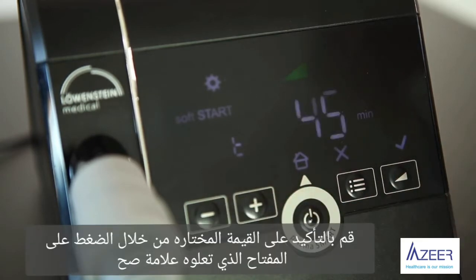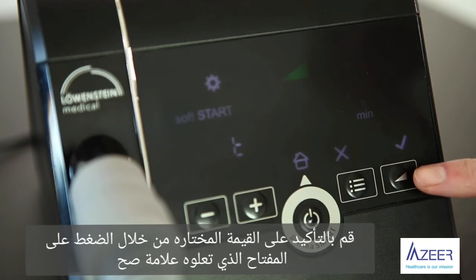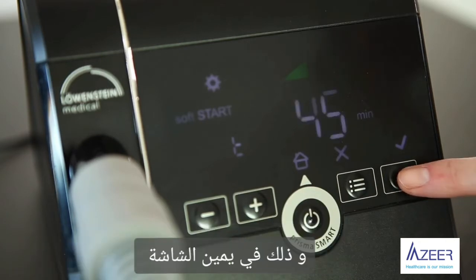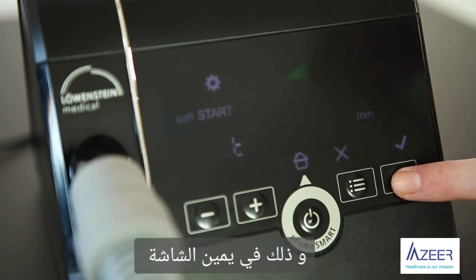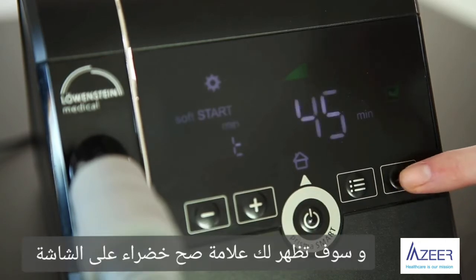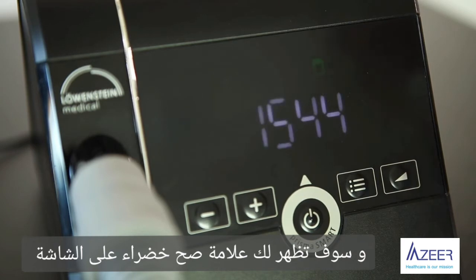Confirm with a small check mark the flashing value on the right of the screen. A green check mark will be displayed.